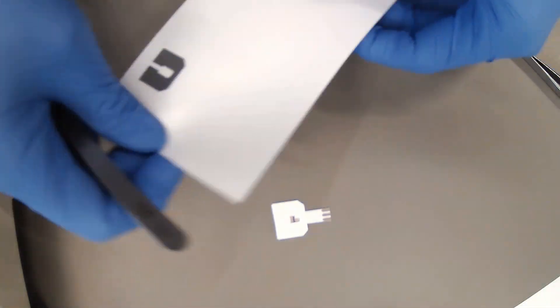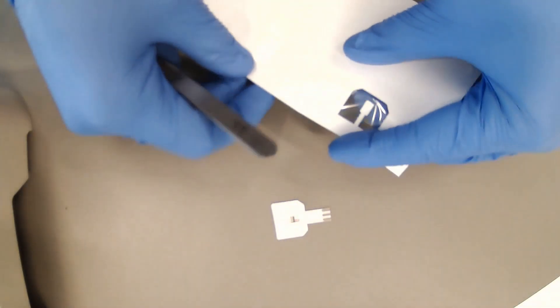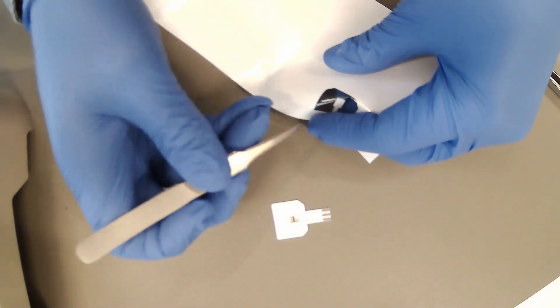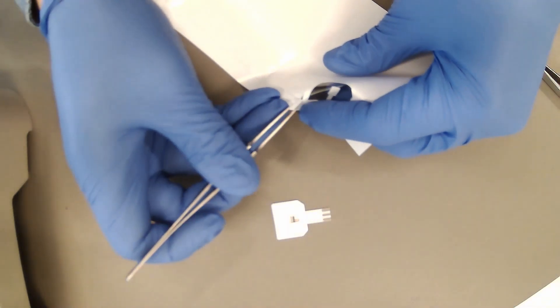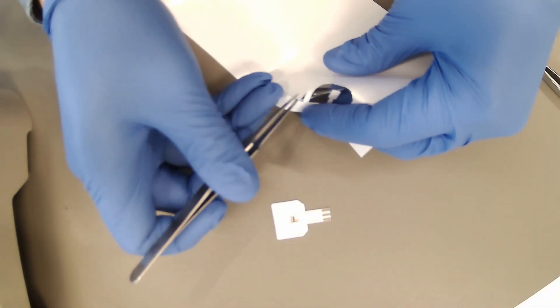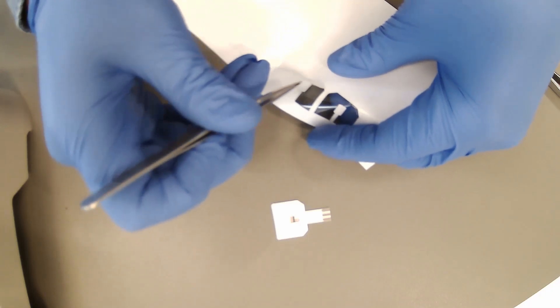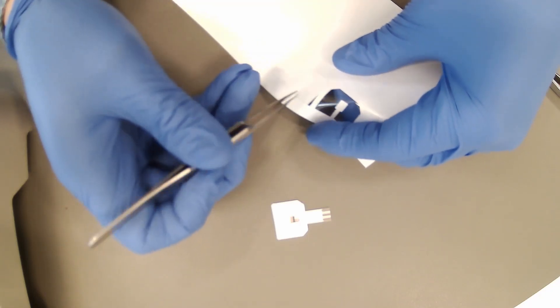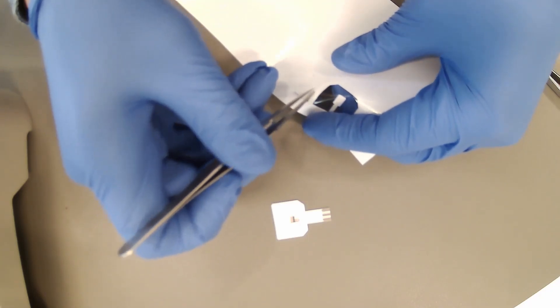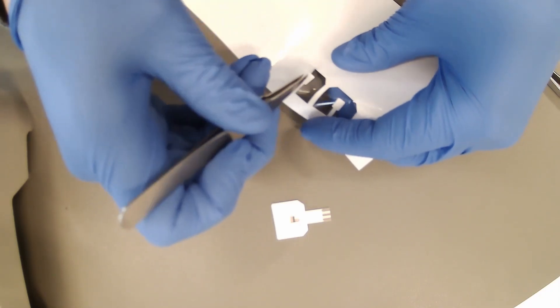The final layer is the outlet layer. This layer ensures dynamic measurement of the sweat sample. It also assists with the circulation of sweat from the skin to the sensing area, then outside of the patch.